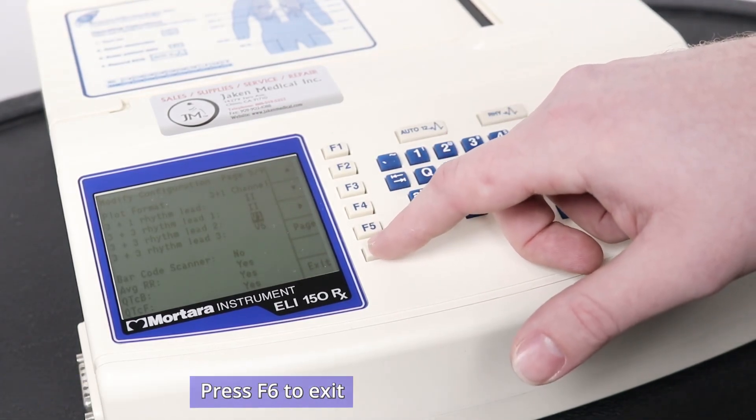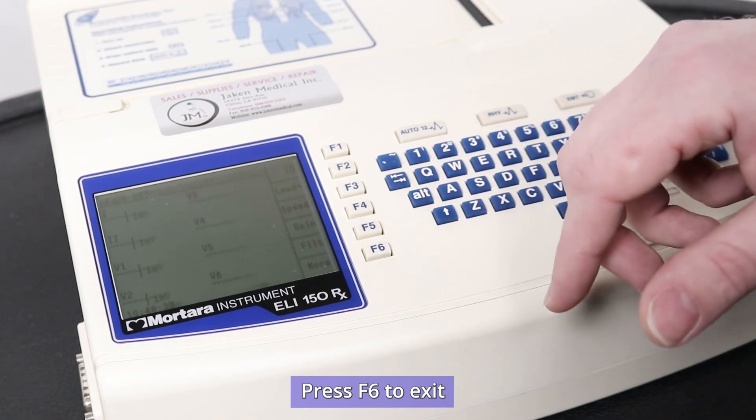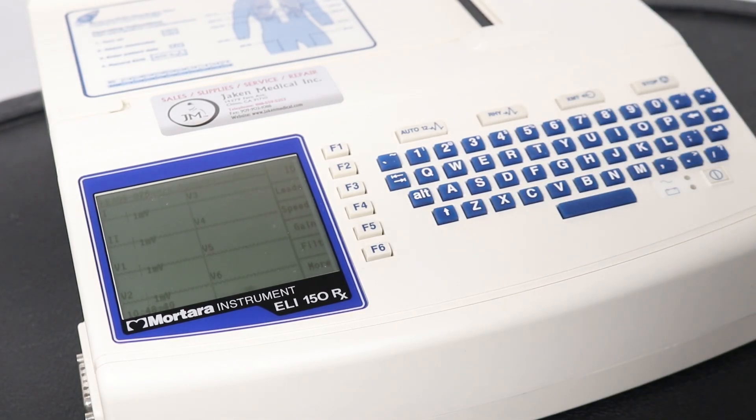Once you are done, hit F6 to exit and all the changes that you have made on the machine will be saved automatically.